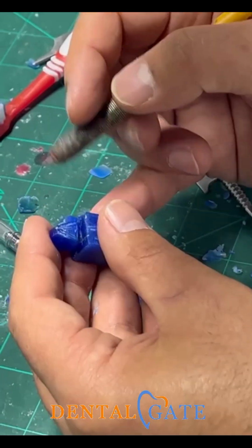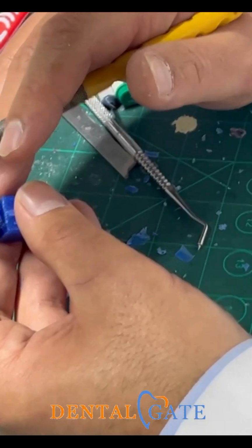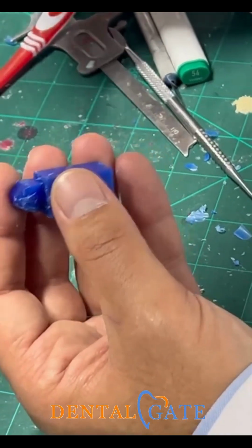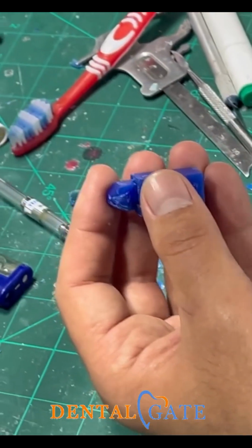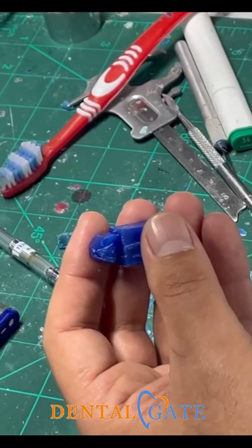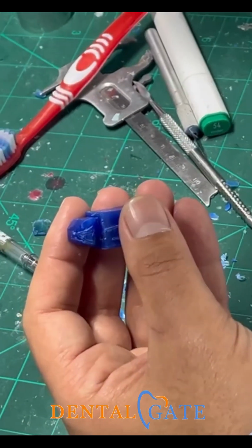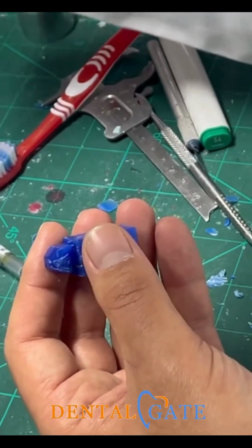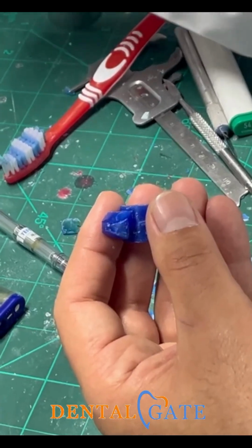Okay? So it's unnatural to make a central without a proportion. It will not be vital. It's not appropriate to put it in the patient's mouth. There is a conflict, a defect in the patient's mouth. So use the proportion. Increase the volume of the central, decrease the volume of the central. Up to you. You have the freedom to do that, because the patient is not real. But we start with the standard point.